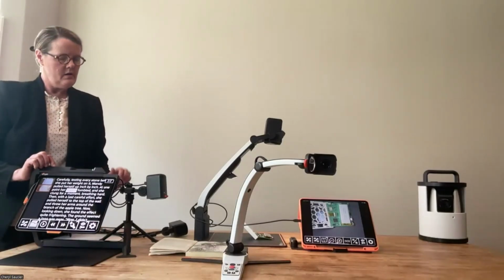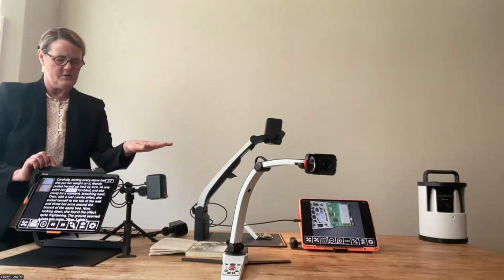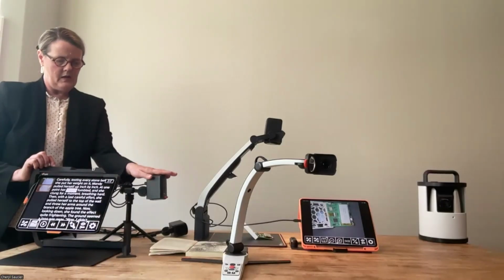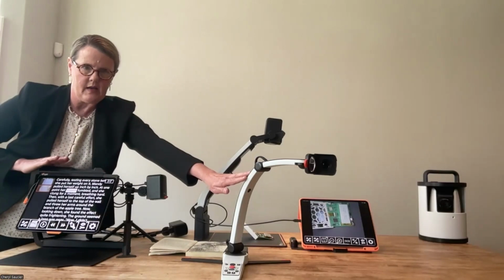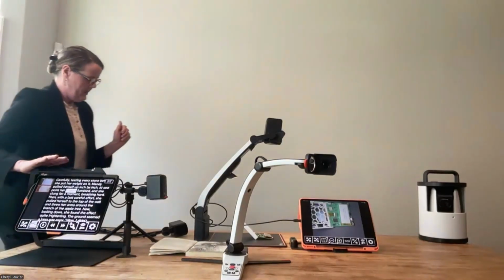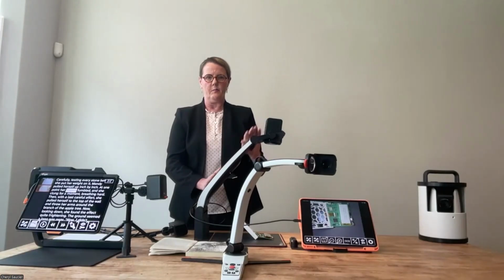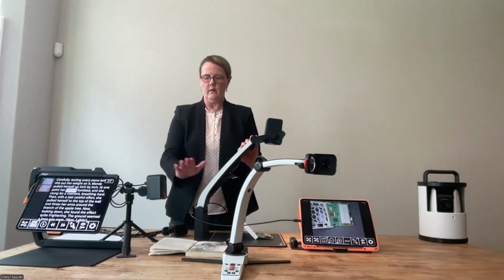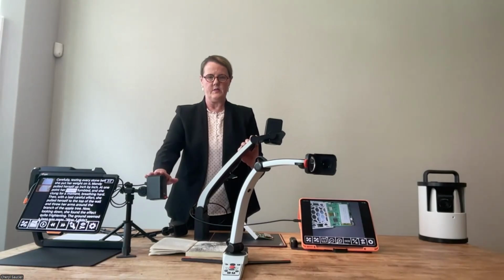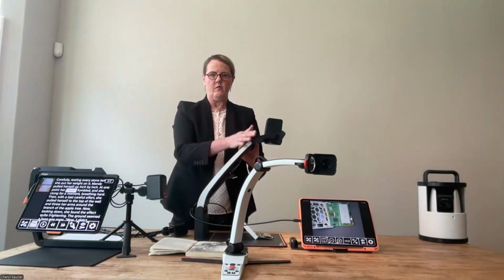The third in this family that I want to talk about, so we talked about the Magnilink Mini, we've talked about the iPad, we've talked a little bit about the Magnilink S. The other one that I want to give more attention to that can work with an iPad is the Magnilink Pro. So this is the Magnilink Pro, and you can see, again, the Mini, the baby sister, the S, a little bit bigger, and then you've got the Pro.